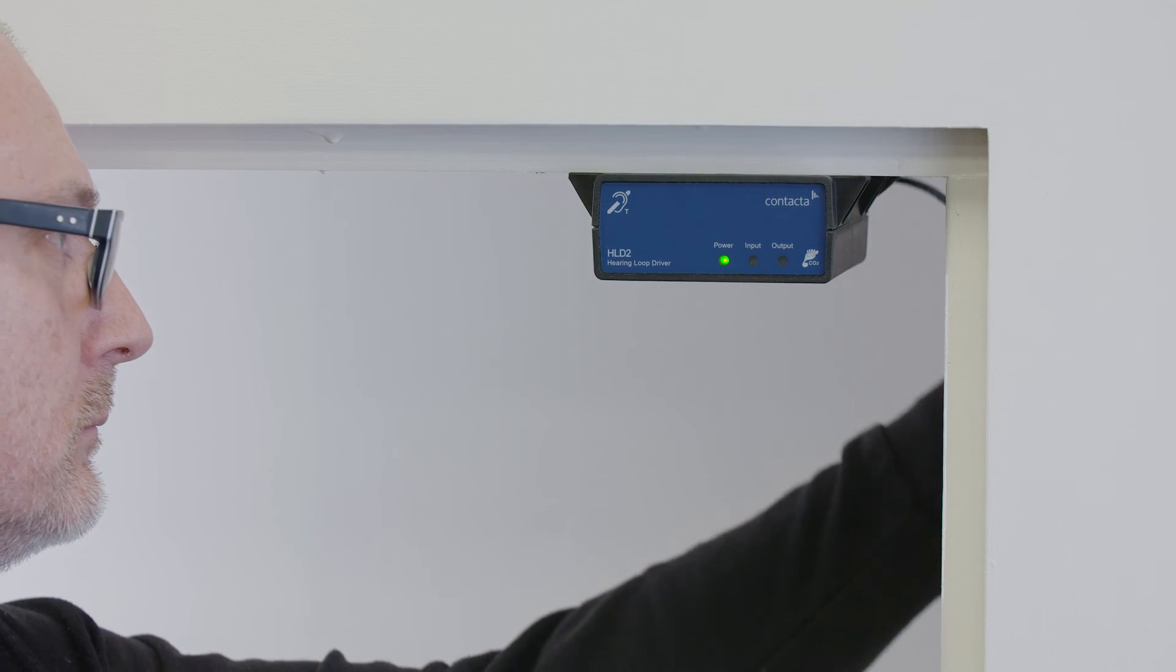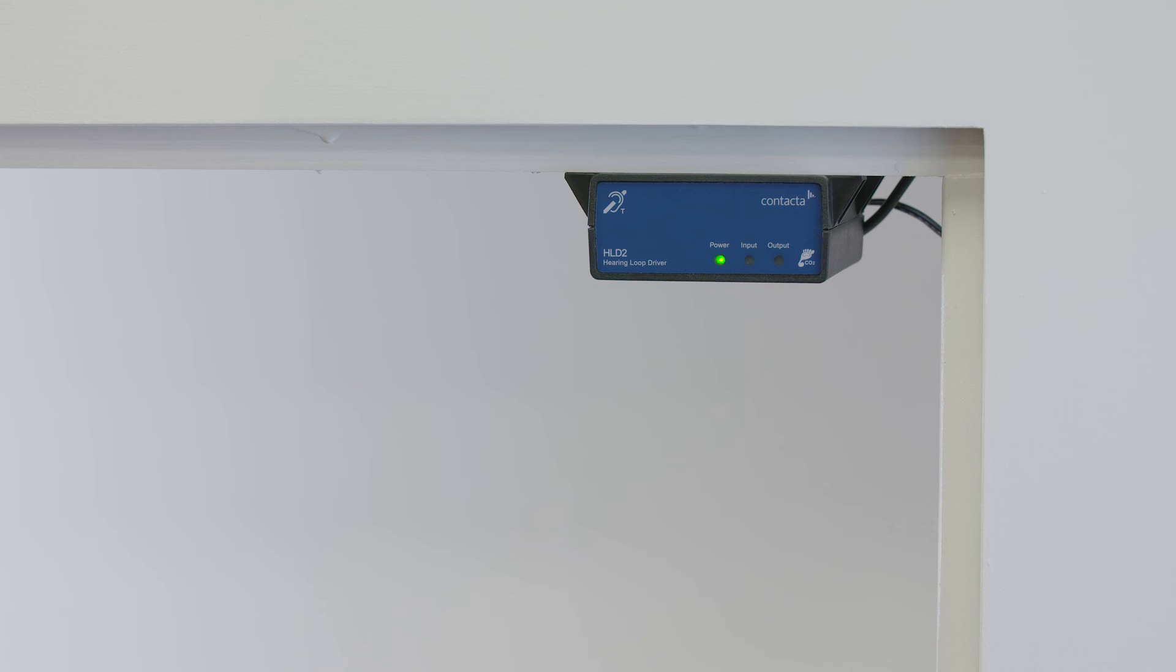Install the driver's power supply close to a power socket outlet using the supplied mounting bracket and fixing screws.